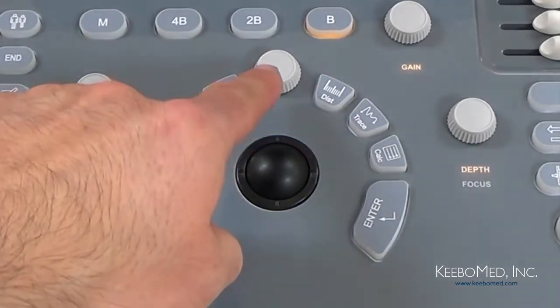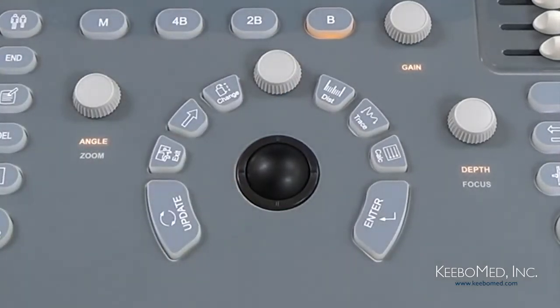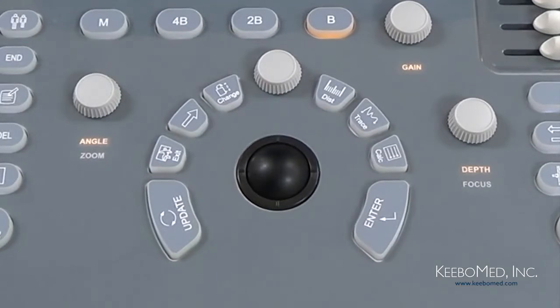Then at the top in the middle here we have a menu knob. Press this knob to enter a specific menu. And while in the menu, the knob can then be rotated to a desired function. Press down on the knob again, a selection can be made, and then adjusted by rotating the knob. Then finally pressing the knob a third time will exit the selection.